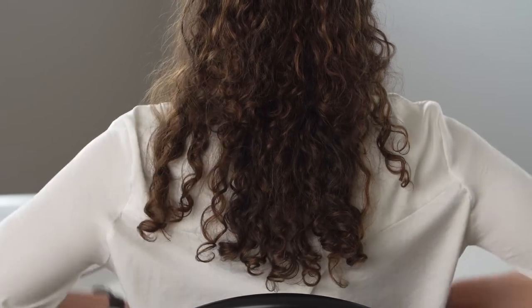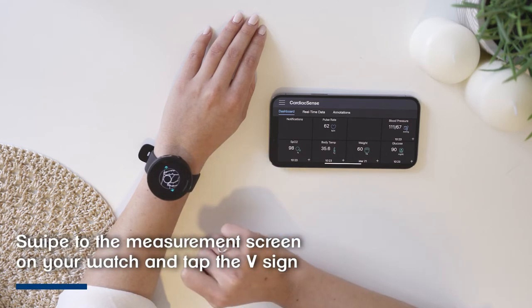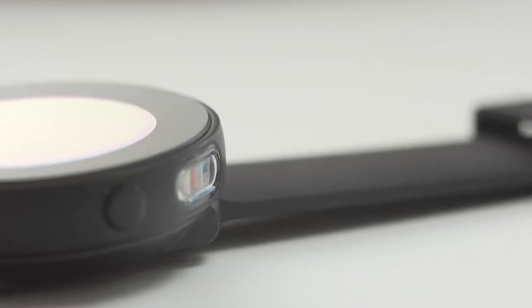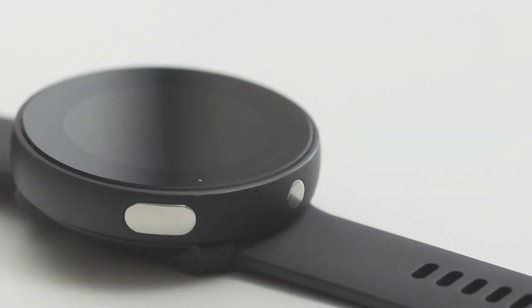please sit up straight. Place your elbows on the table and try to sit still. Then place your index finger on the watch optic sensor located on the upper right side of the watch, and place your thumb on the oval metal sensor on the lower left side of the watch.